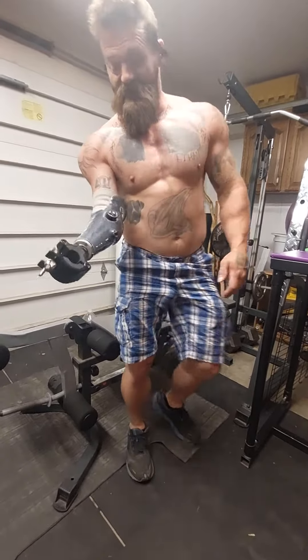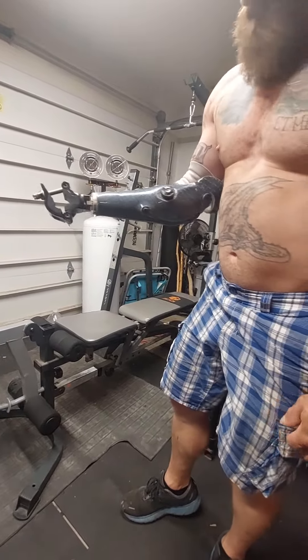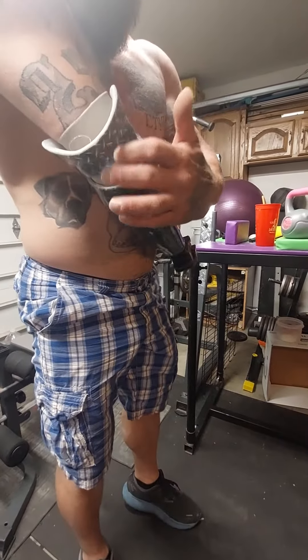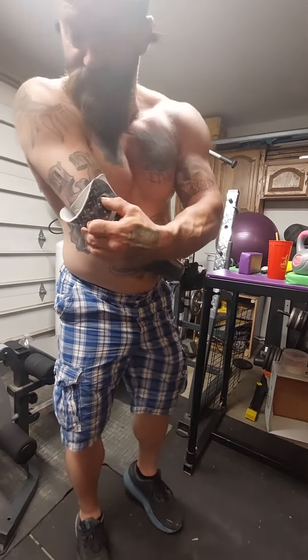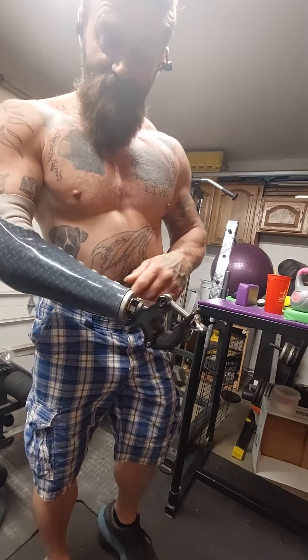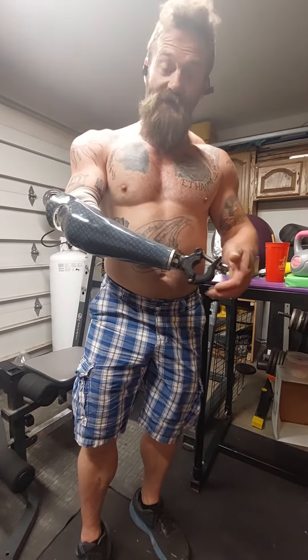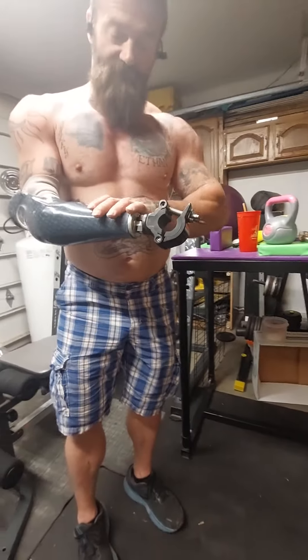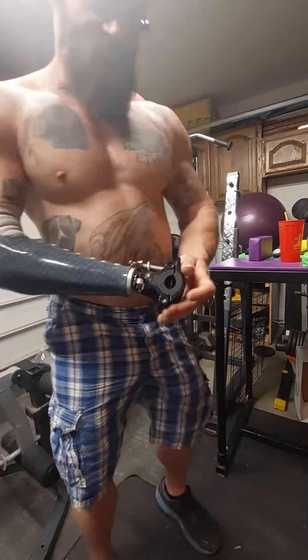Just got my new arm today, strictly made for working out. This new concept — my prosthetic guy Jim Middleton at Rimrock Prosthetic reached out to a bodybuilder guy, I don't remember his name. But this arm is going to get beat to shit. This is for working out, and for me to start using it for work, to get over some things I've been dealing with my whole life. This is going to be the first workout.